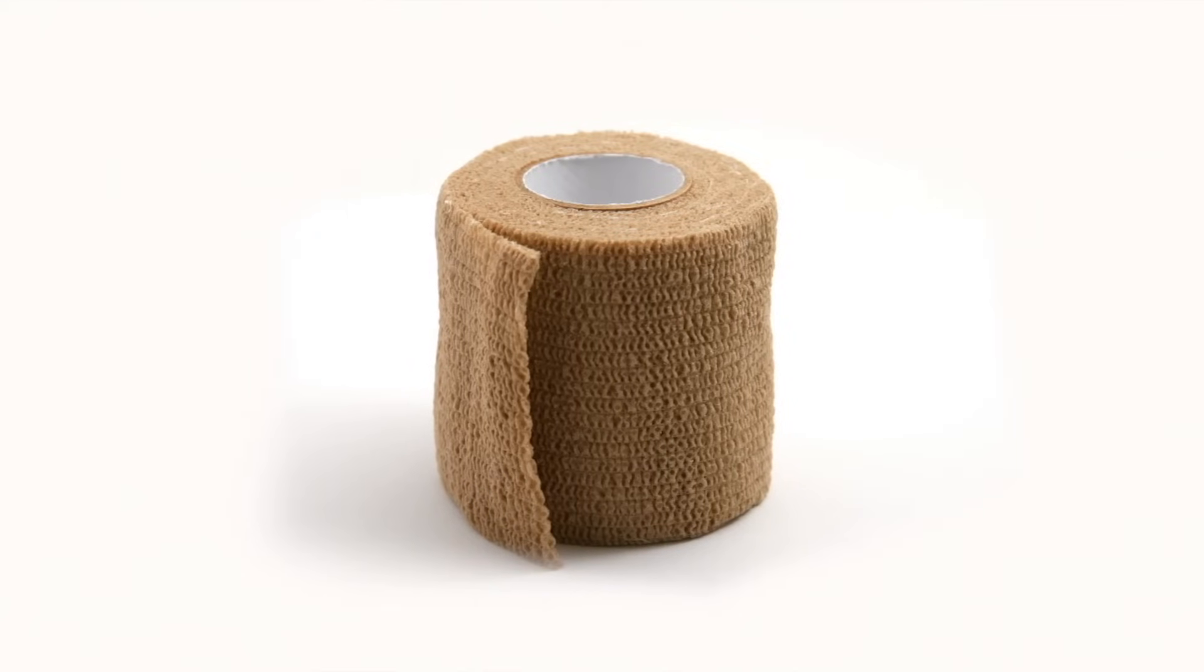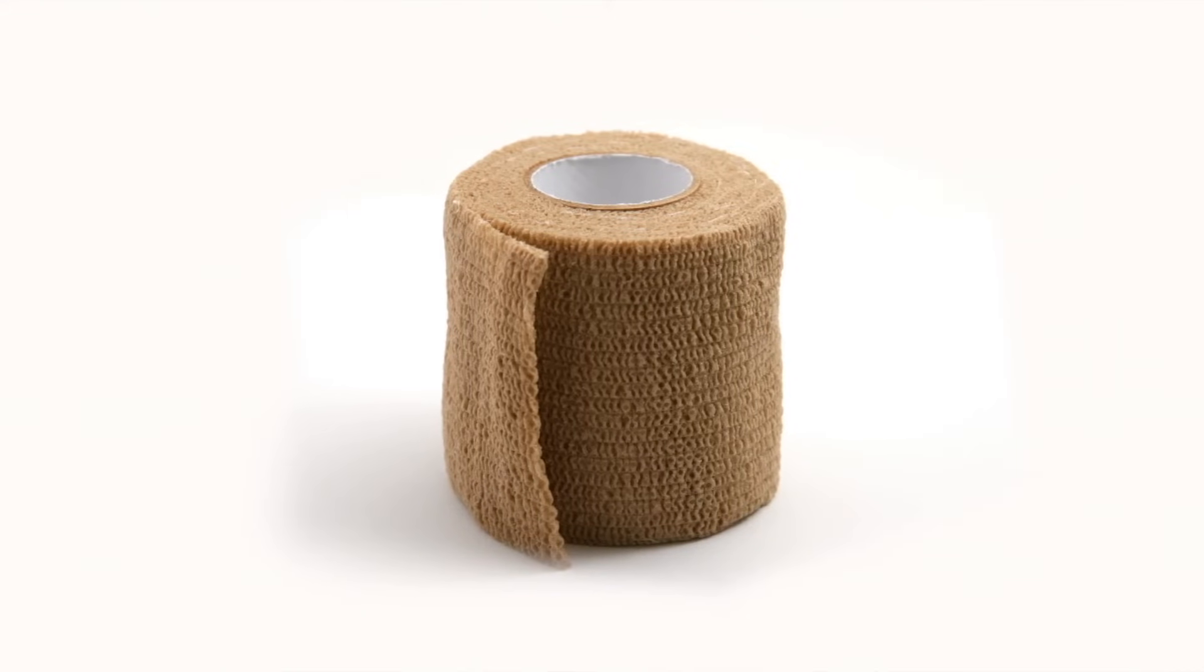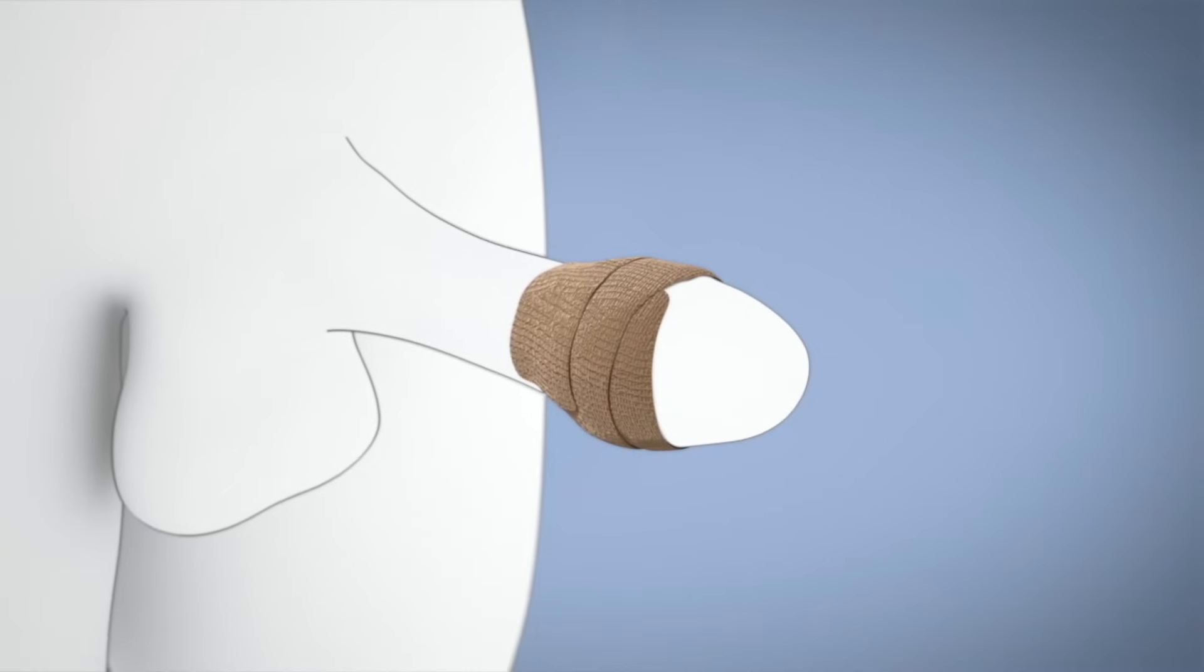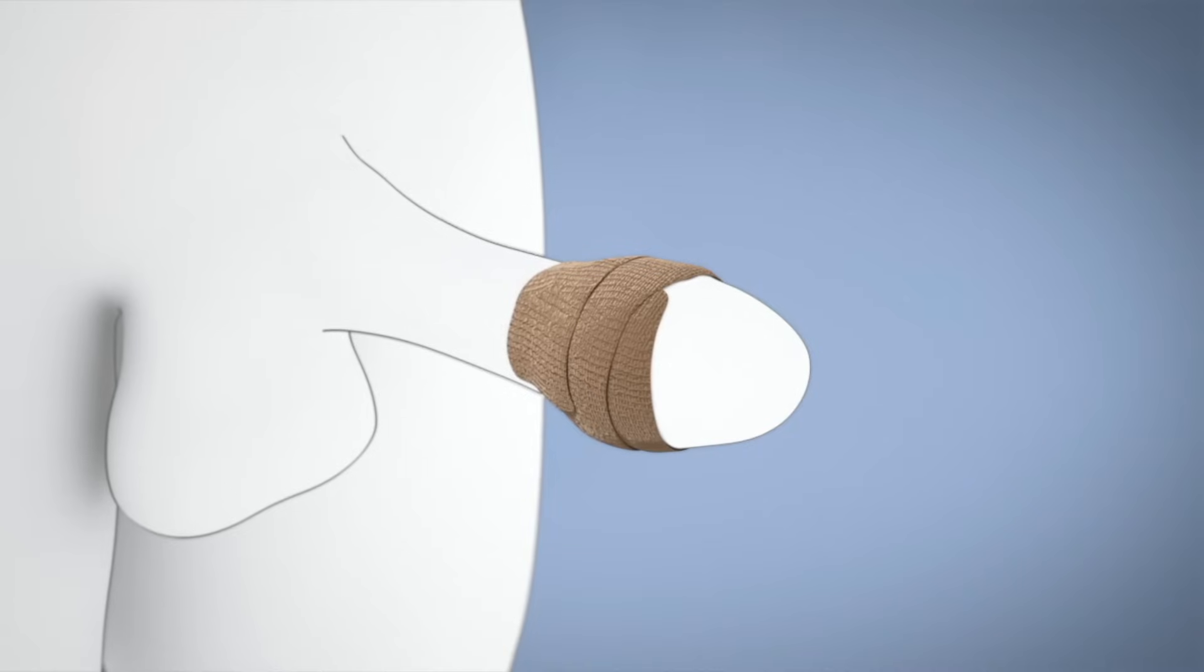It is recommended to use the enclosed self-adherent wrap to improve comfort. Wrap the penis two to three times, as shown. Do not over-tighten, however. If worn too tightly, it can restrict blood flow to the penis.